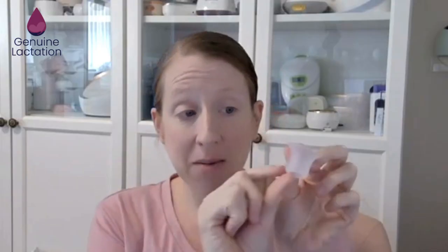What really stood out to me is that not all of them had the size marked. I did get 13, 15, 17, 19, and 21 inserts, which is awesome. But not all of them have the size printed on them — some have it on the rim, some just had a number down at the bottom. It's completely unfinished.